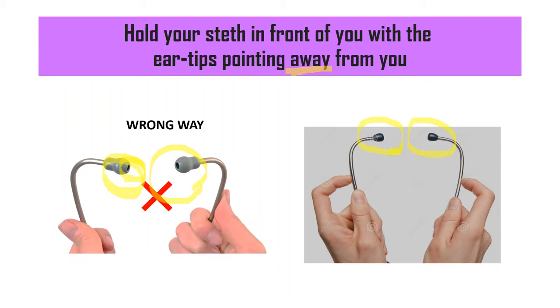But when you hold it the right way, when the eartips are facing away from you, you cannot see that hole. This will be the right way of holding it. Do this before you wear a stethoscope.